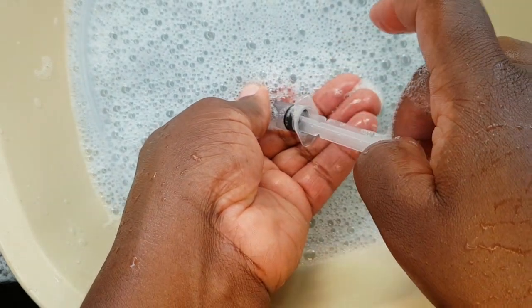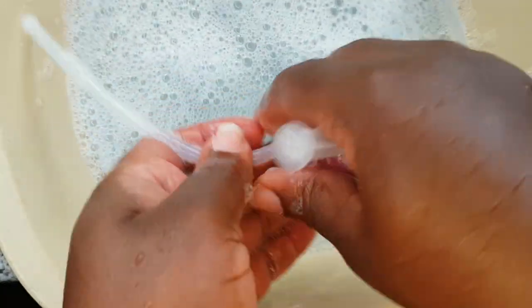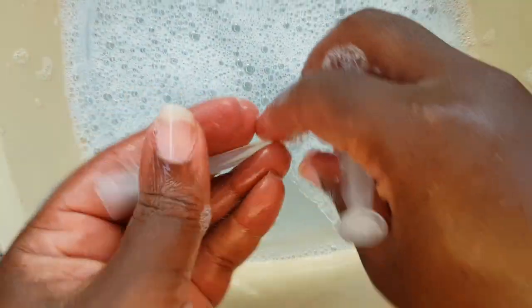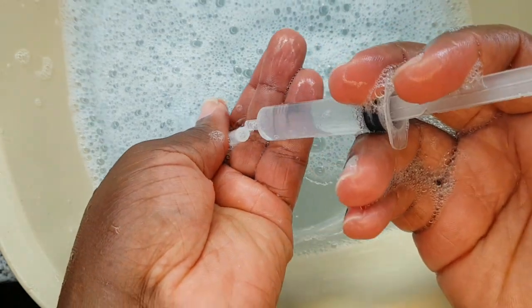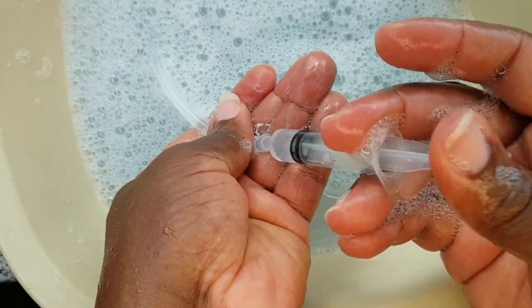What you're going to do is draw some of the water into the syringe and then pump it into the tubing, and this is basically all you're going to be doing.